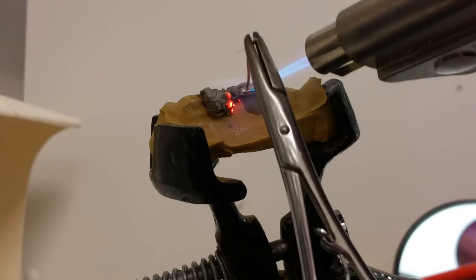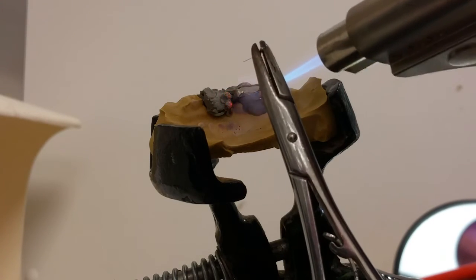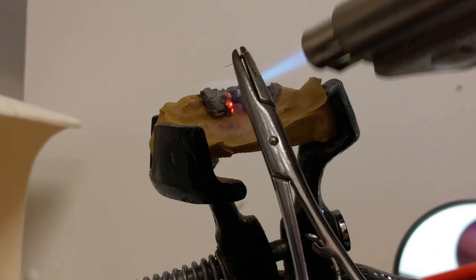I'm using the flame to kind of move the solder around to go around the wire and get the band. Oh, there it goes. It flashed. It relaxed.